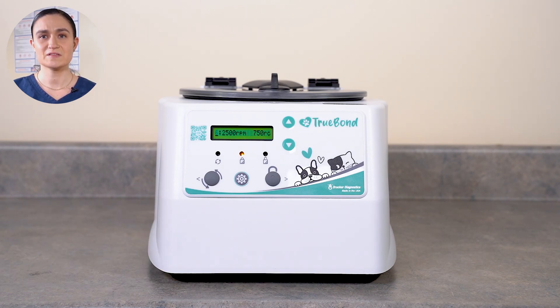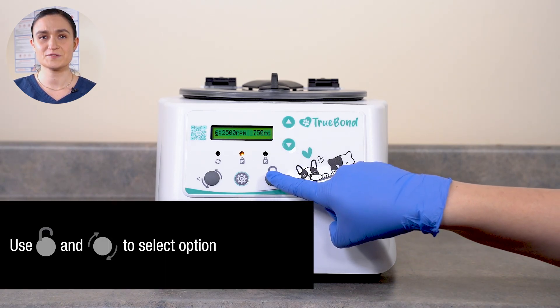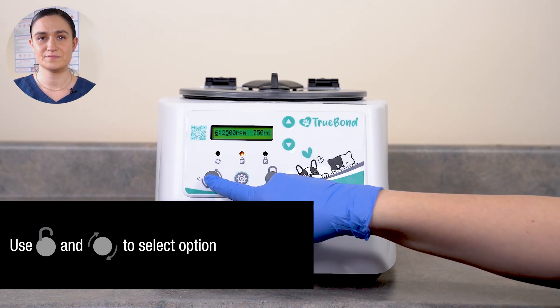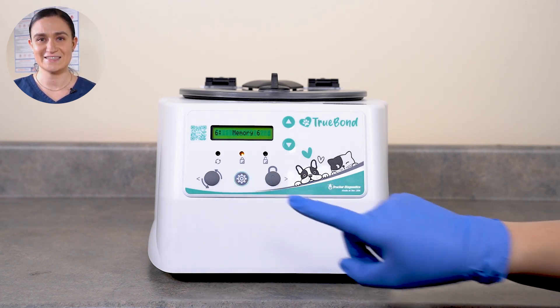From this screen, you can scroll through several menu options. Pressing Stop Unlock will scroll to the next option. Pressing Start will scroll to the previous option. Pressing Menu again will save any changes made so far and exit.